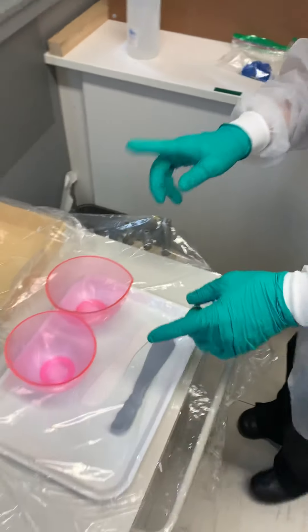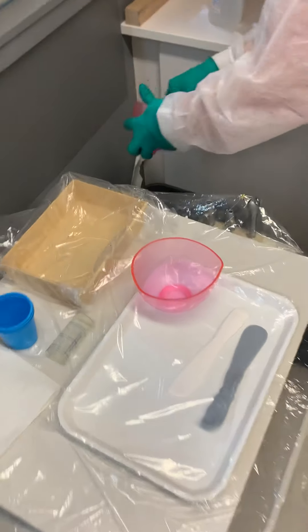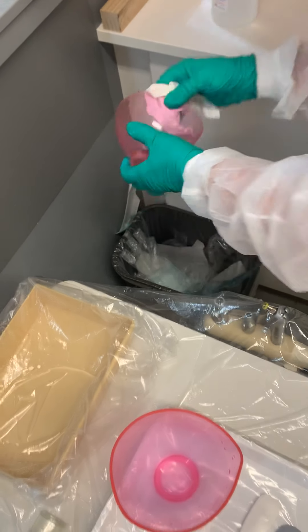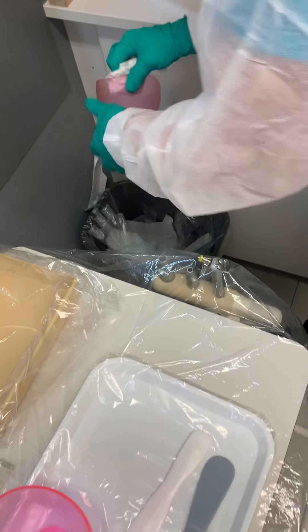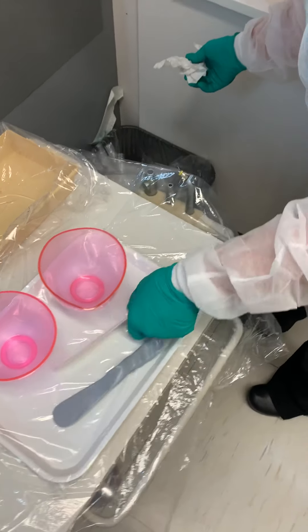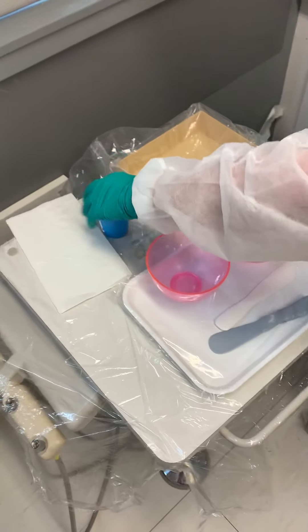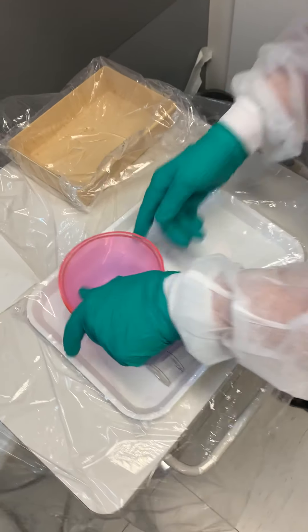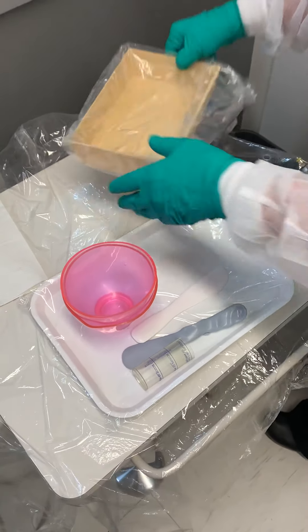Now I'm going to break down the room. What you want to do is take a couple paper towels and clean out your bowls — it'll just make life easier when you go to the sterilization. Wipe off both bowls, as much out of there as you can. Wipe off your spatulas. Your cups are going to be trash. This cup stays here. Now this one has a barrier, so we need to shimmy that barrier out.